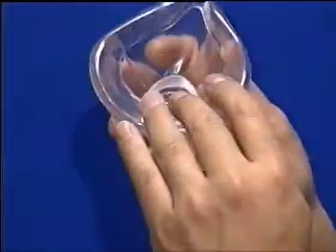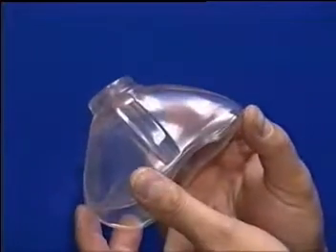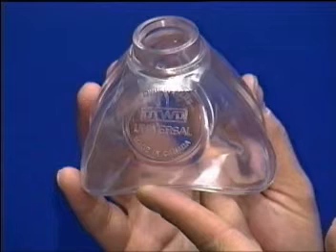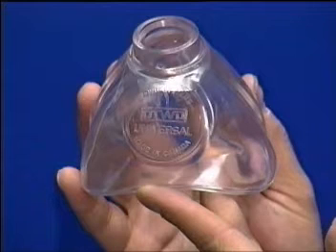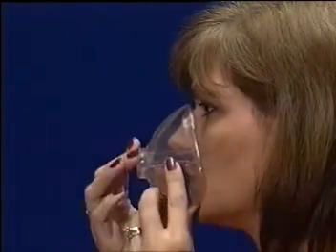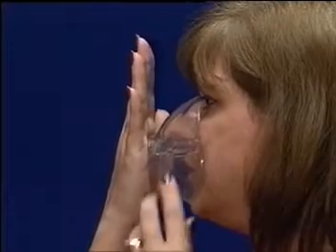Due to its design, it requires no inflated cuffs which can puncture or deflate, and does not rely on rigid plastic pieces for structural integrity that may potentially fail or break — due to in-built lateral ribs. This unique mask design facilitates a superior seal with the varying hand pressures of different rescuers and allows for a minimum of pressure being required to obtain a seal regardless of facial size.